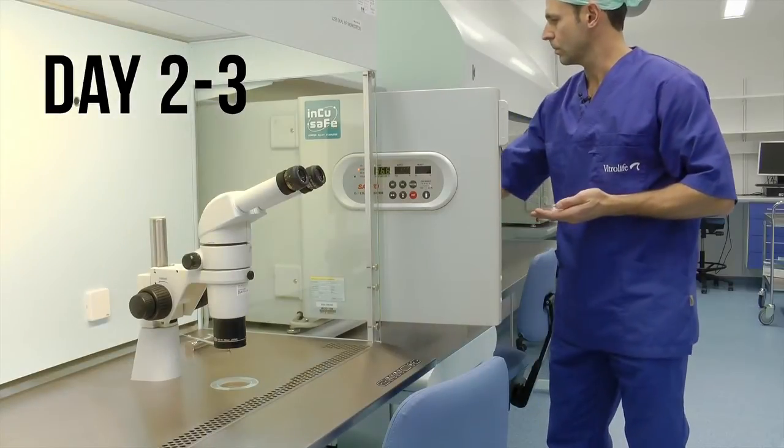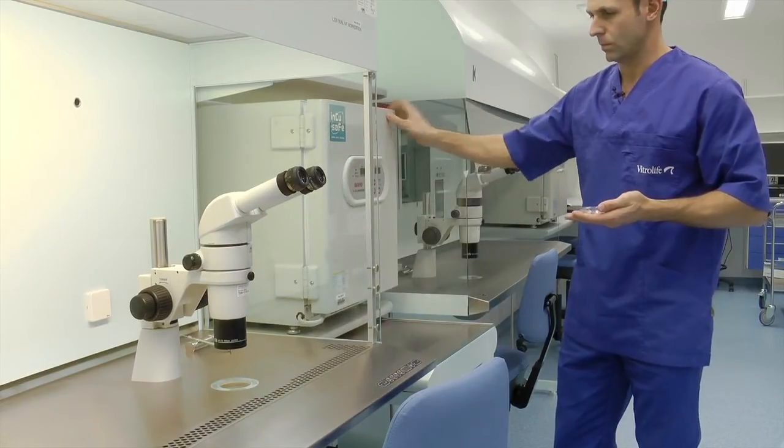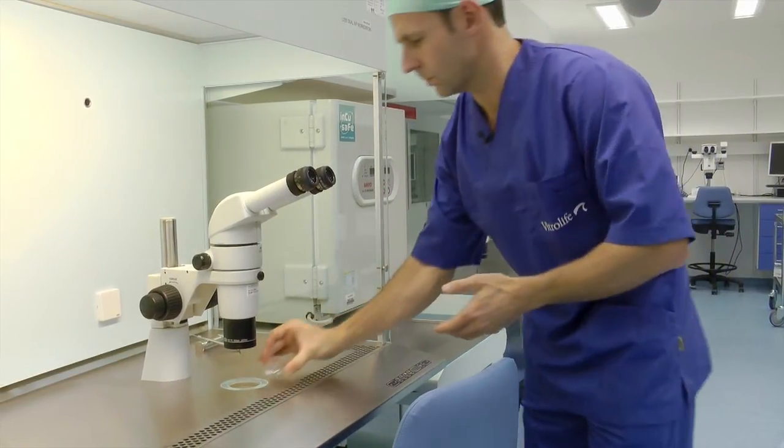Depending on the day of embryo transfer, assess your embryos either on day 2 or day 3 and then proceed to the embryo transfer.